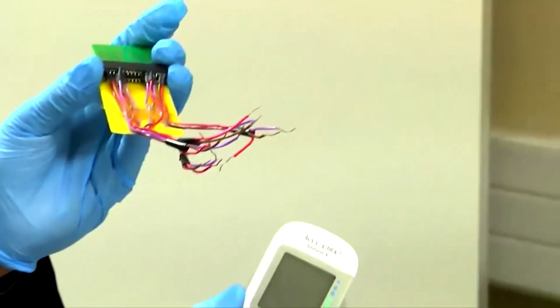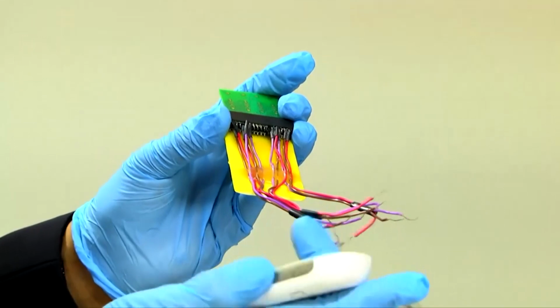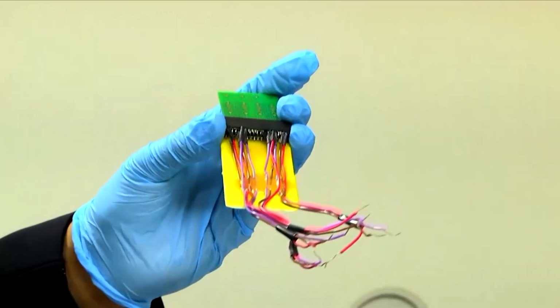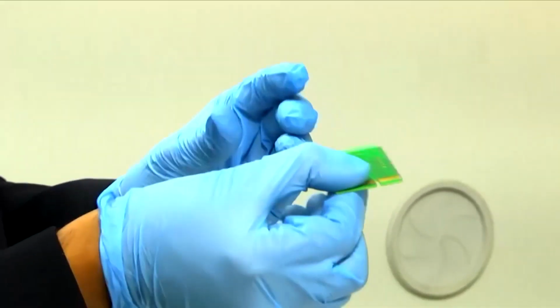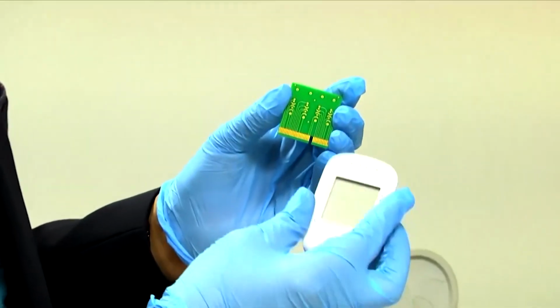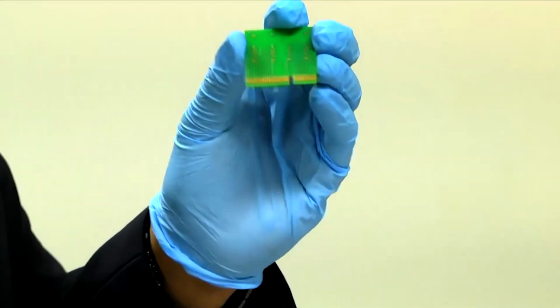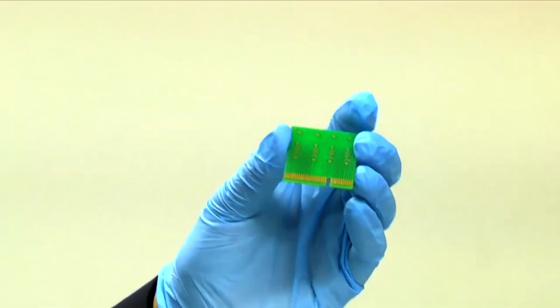Something like this, a portable device. It can be connected. See, this is very handy and simple, right? That's what I told you about mobile phone based. Right now it is separate, but the same thing you can insert into your mobile phone. Then your mobile phone will be your display, right? You can see the data on your mobile phone. It's clear.